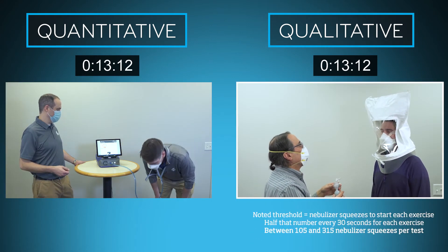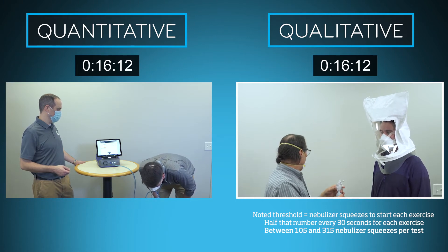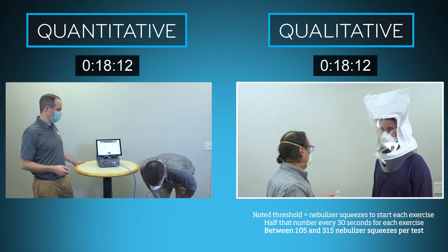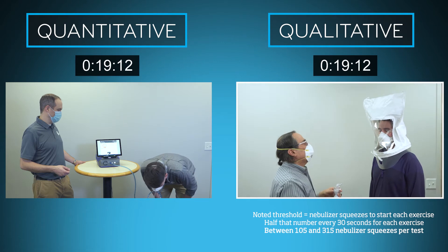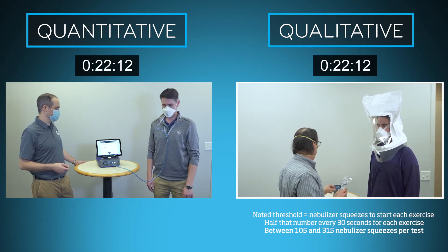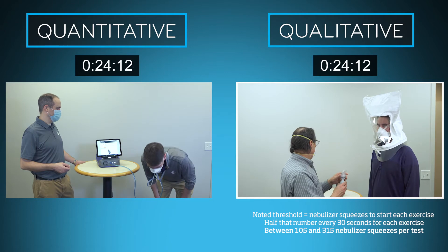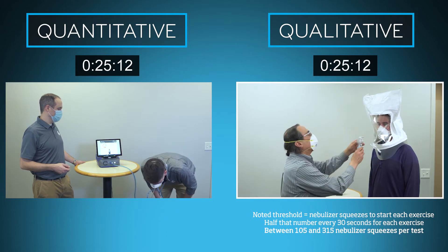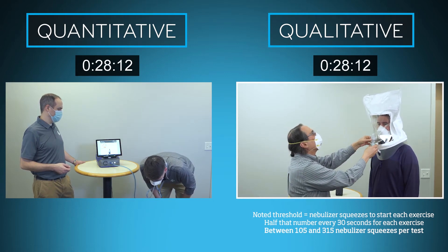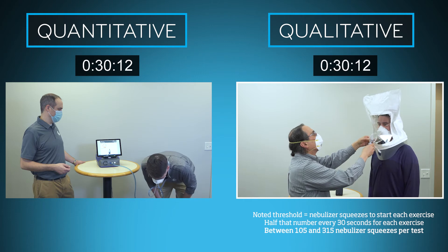For the qualitative fit test, the number of nebulizer squeezes noted from the threshold or sensitivity test are introduced at the beginning of each exercise, followed by half that number of nebulizer squeezes every 30 seconds. This results in between 105 and 315 nebulizer squeezes per test.